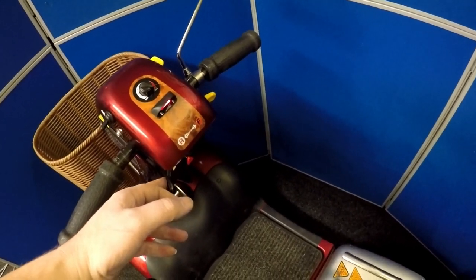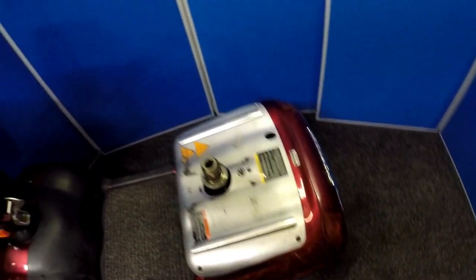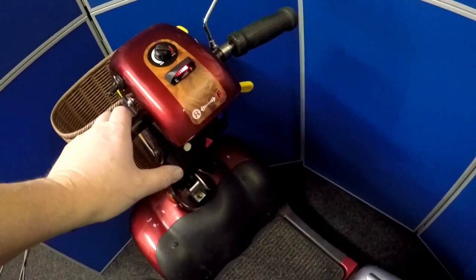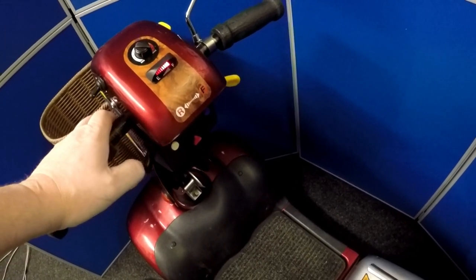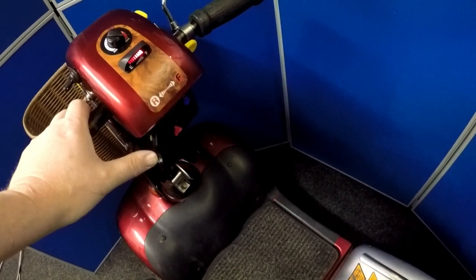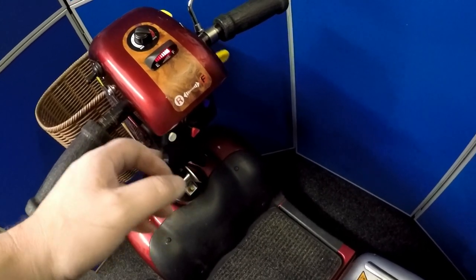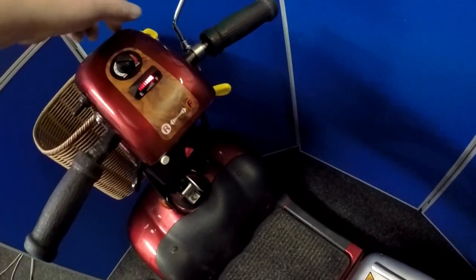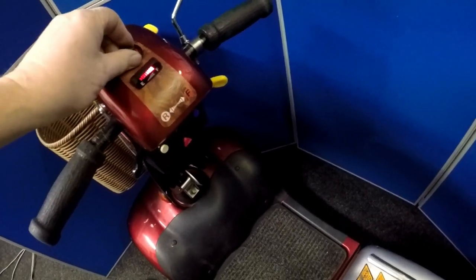I'm spinning it — the motor is spinning but it is very noisy coming from the back end. Let me try it in reverse. It doesn't seem to be any problem at present, it seems to be driving okay. Hang on — yeah, it's not moving at all now for some odd reason. Let me switch it off and switch it on again and see what happens. Set it to maximum.